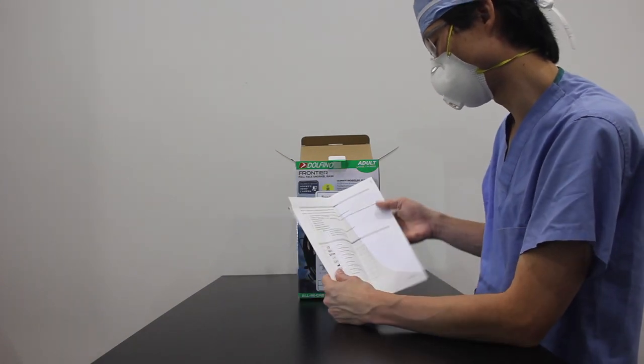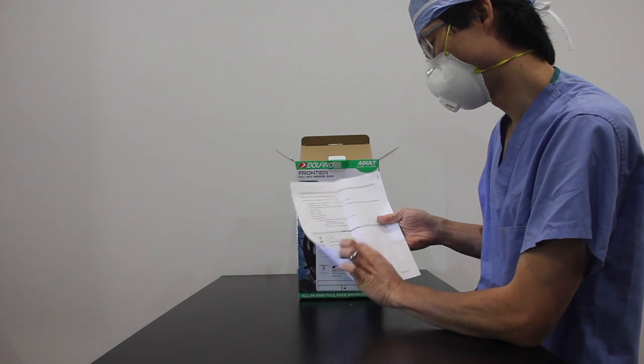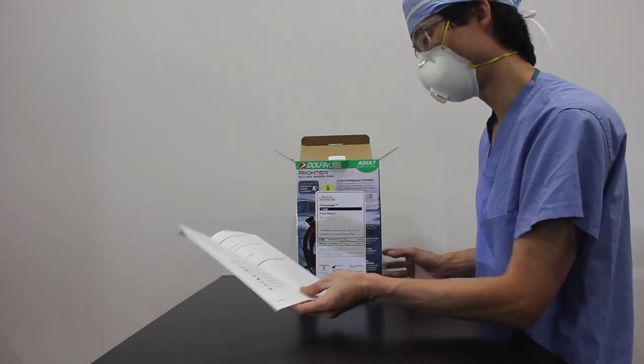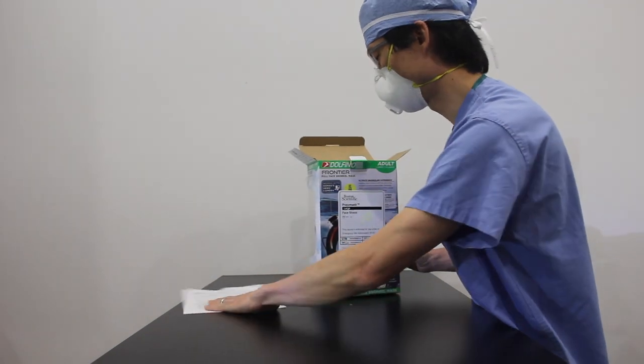A place where you can send your complaints to, and then an explanation of the symbols. So it's kind of nice. Nice little packaging there. Instruction sheet. So let's open it up.